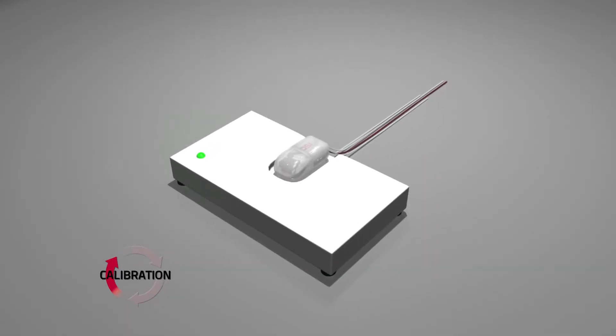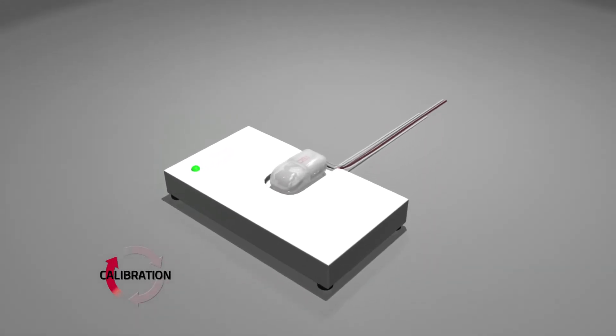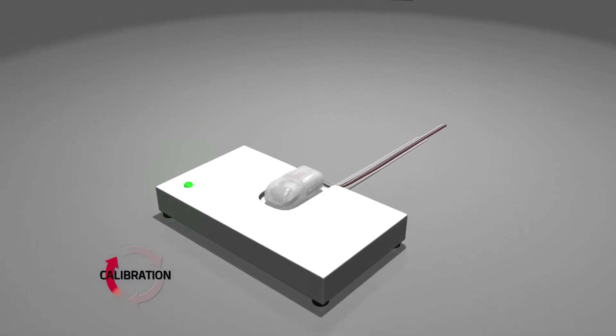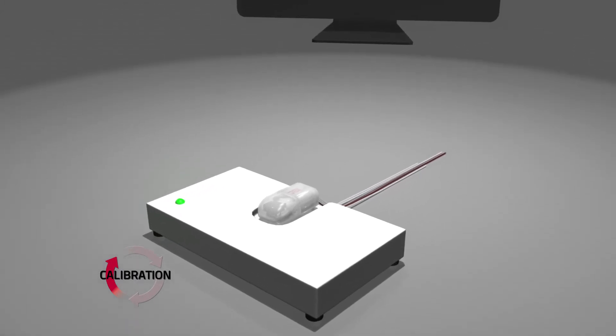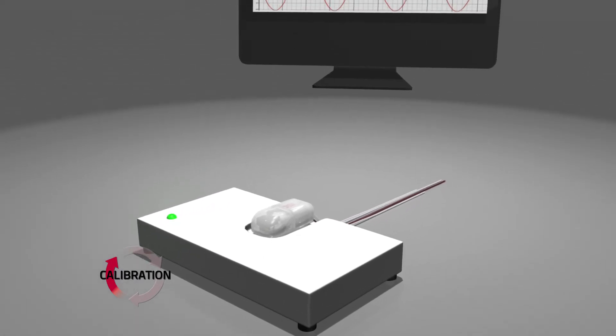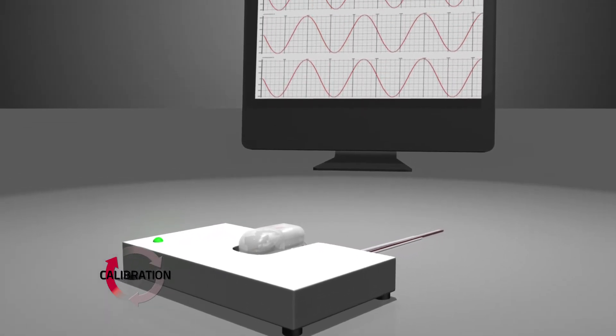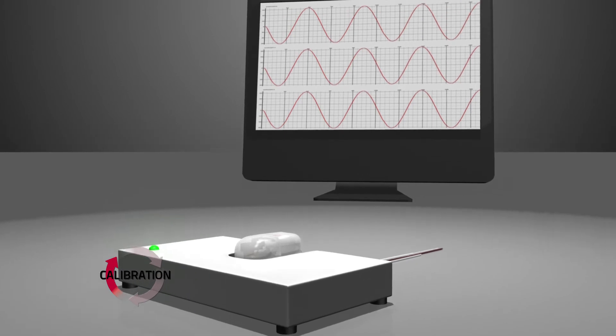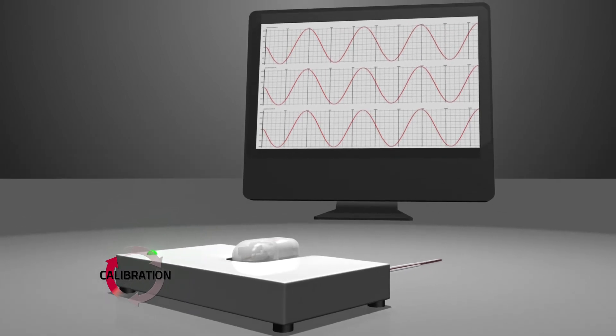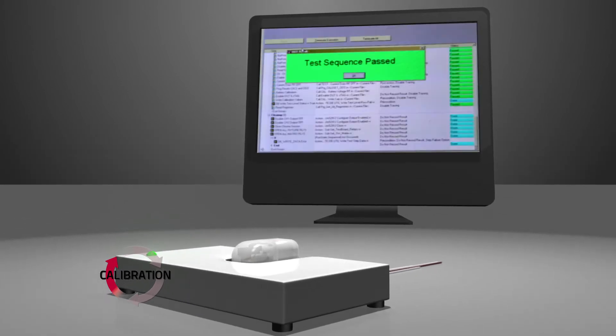DSI tests all components to guarantee optimal implant functionality. Each implant sensor receives full calibration in highly stable test environments to ensure accurate data collection from study animals.